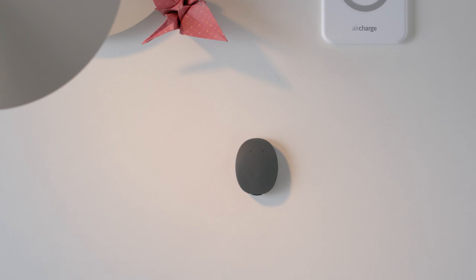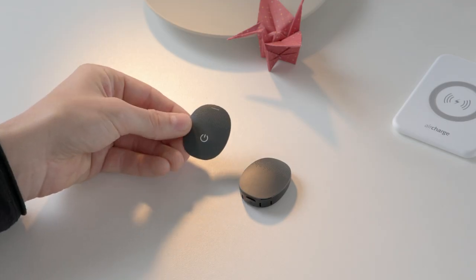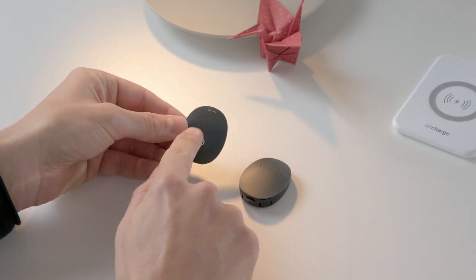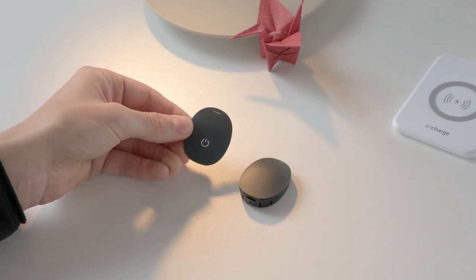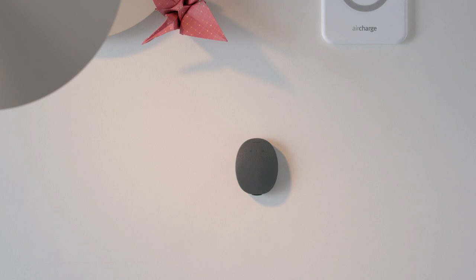If you are a new user or caregiver, you might find the simplicity cover useful to help familiarize yourself with the location of the on off button.